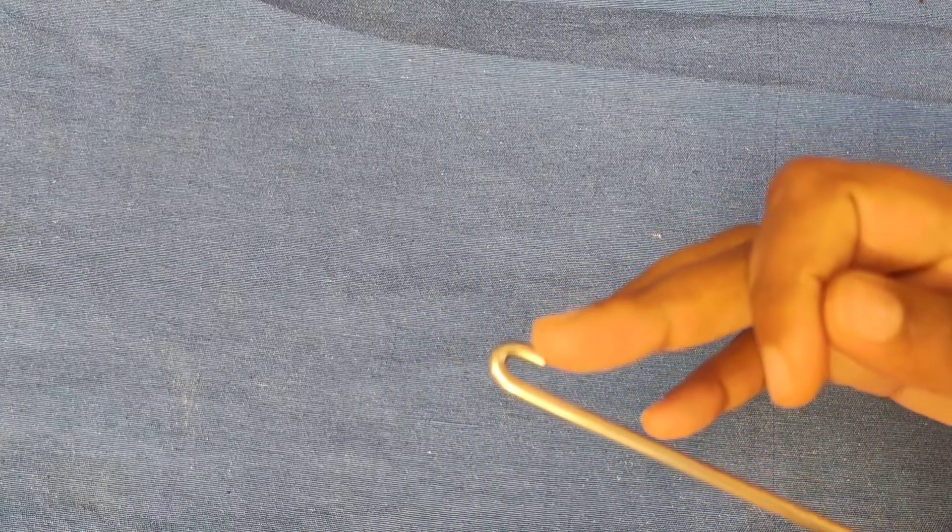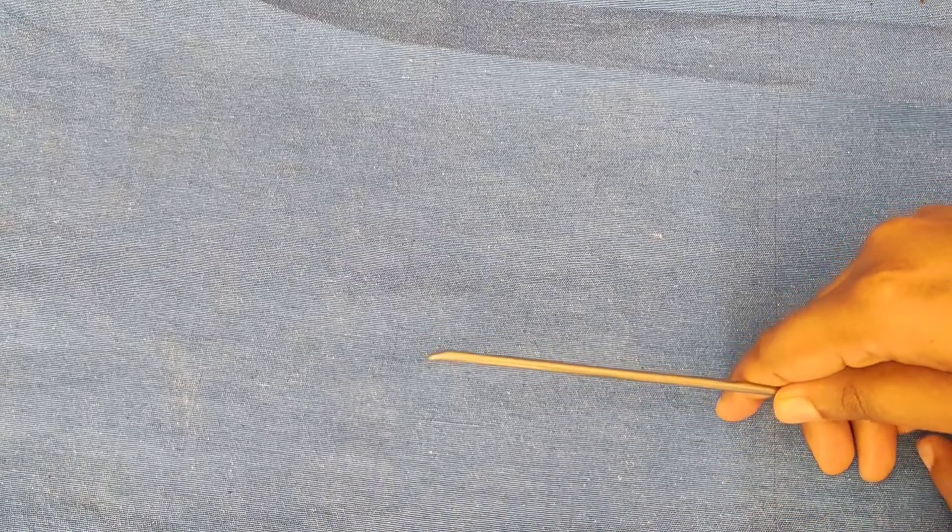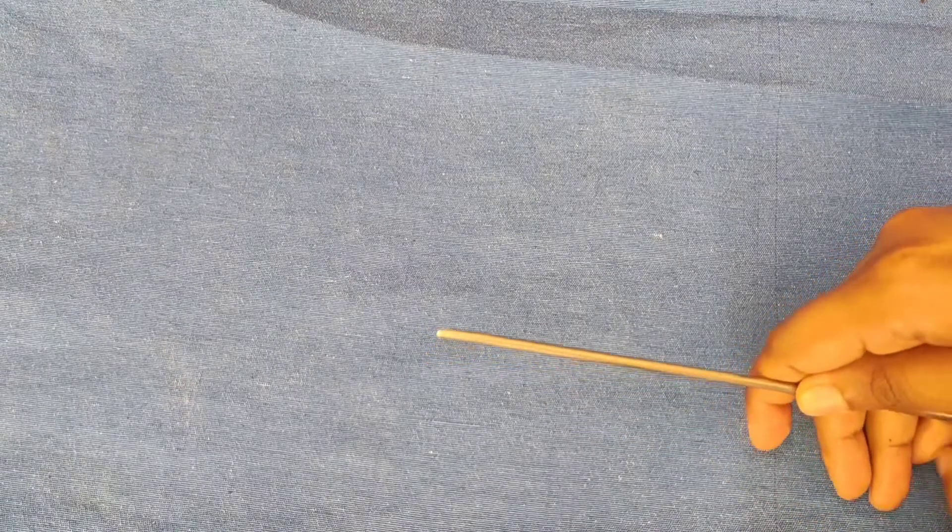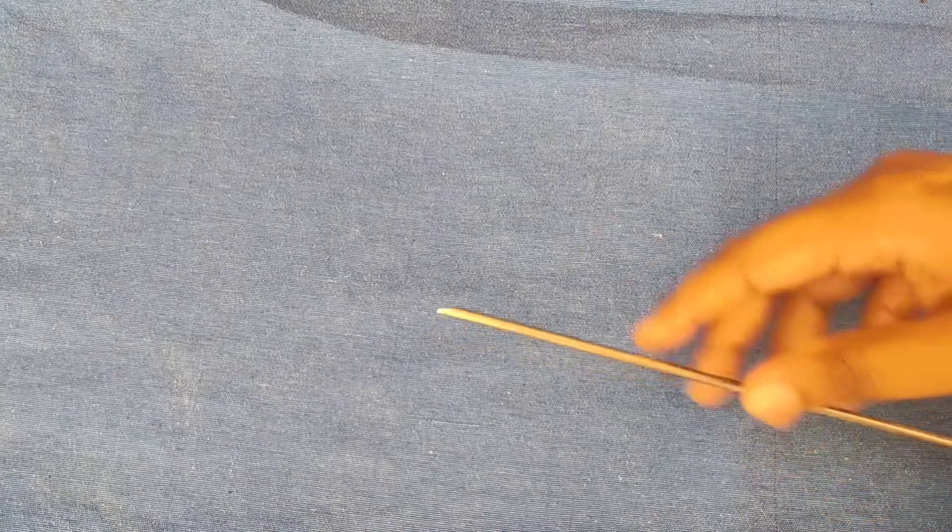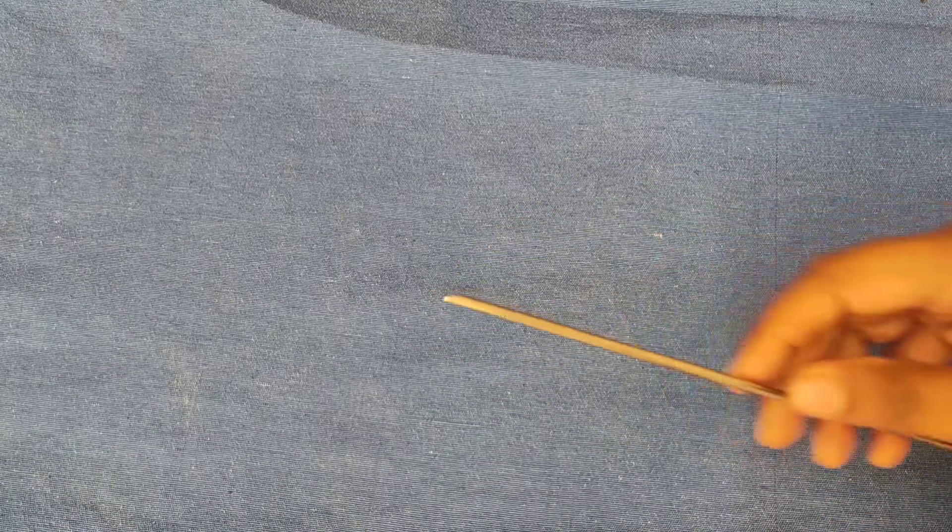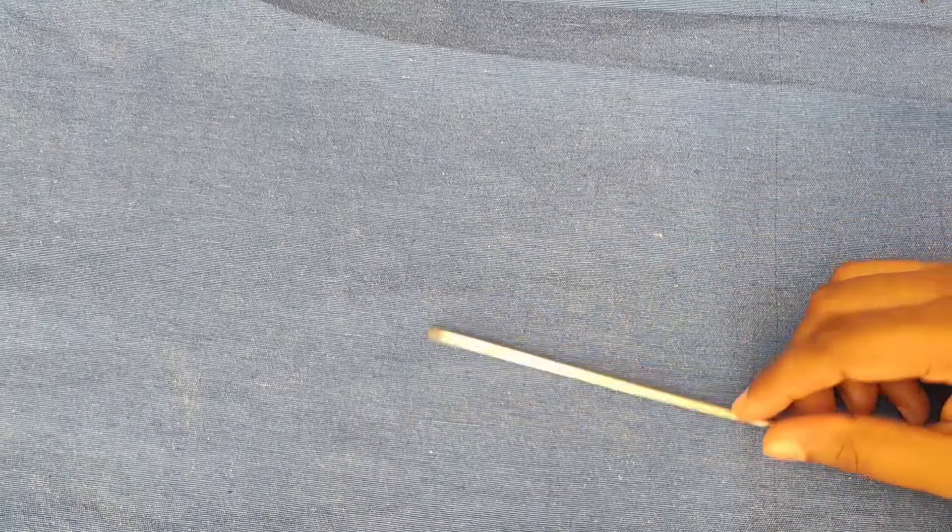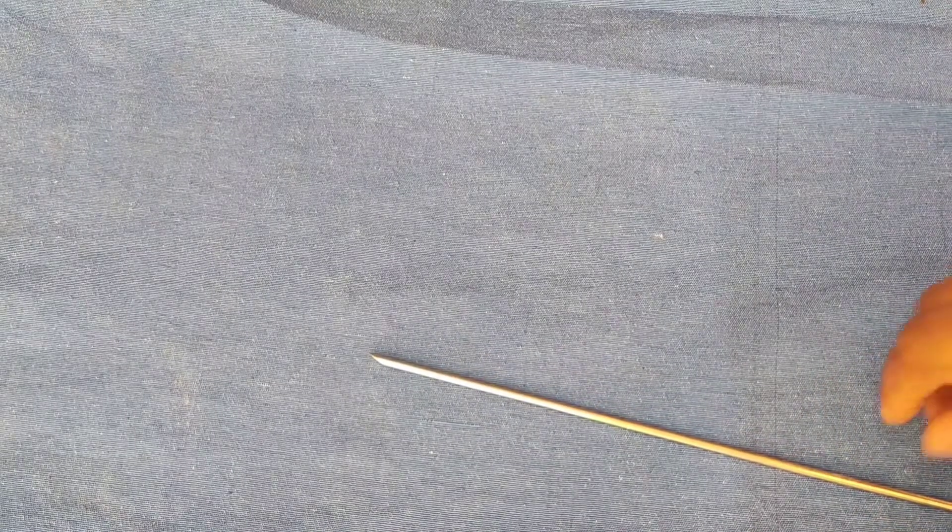This beveled tip helps for easy migration of the nail inside the medullary cavity, and the hook shaped end will prevent migration of the nail inside the medullary cavity and help for extraction of the nail. The principle of the nail is three point fixation.